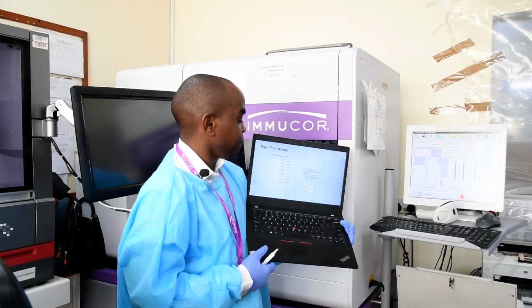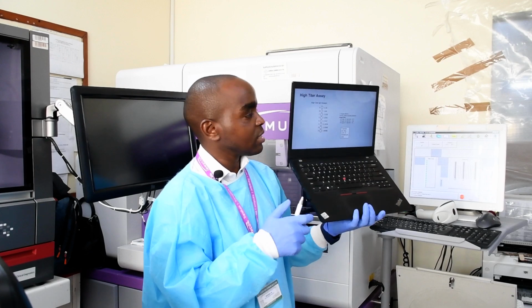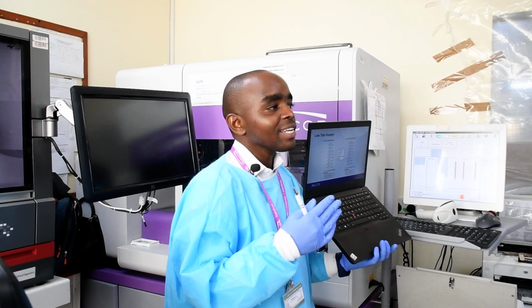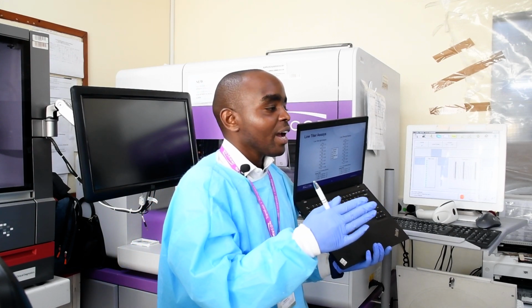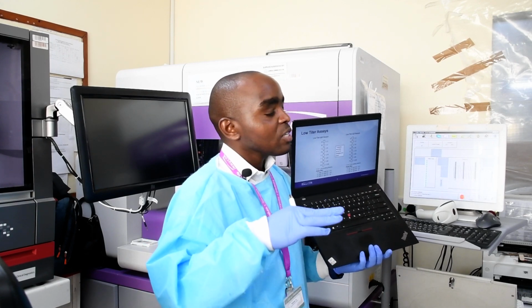For the high titer, the reason why you will not have to move to that level is that it goes from 1:16. Remember, the other one is from 1:1. The high titer will be from 1:16. This is where the titer is too high and you want maybe to see exactly what it is. Probably there's no other option for any other donor, and so you want to go a step further to know exactly what the titer is and probably treat that platelets or that blood so that it can have a reduced titer.